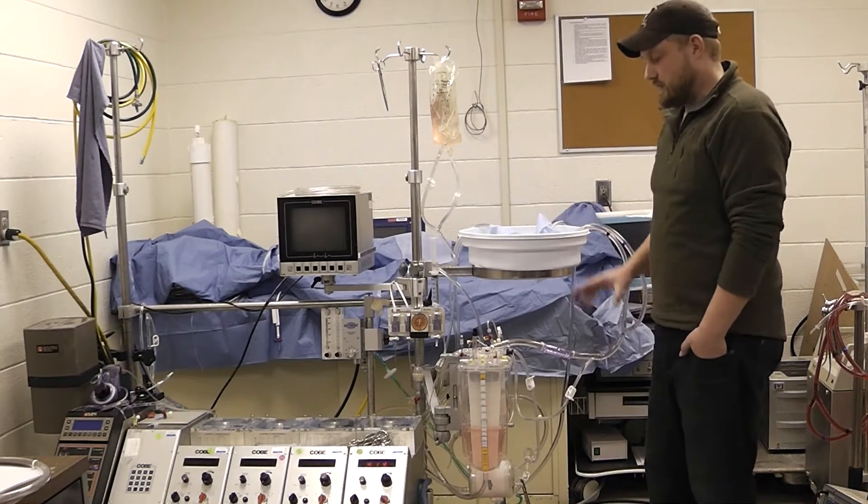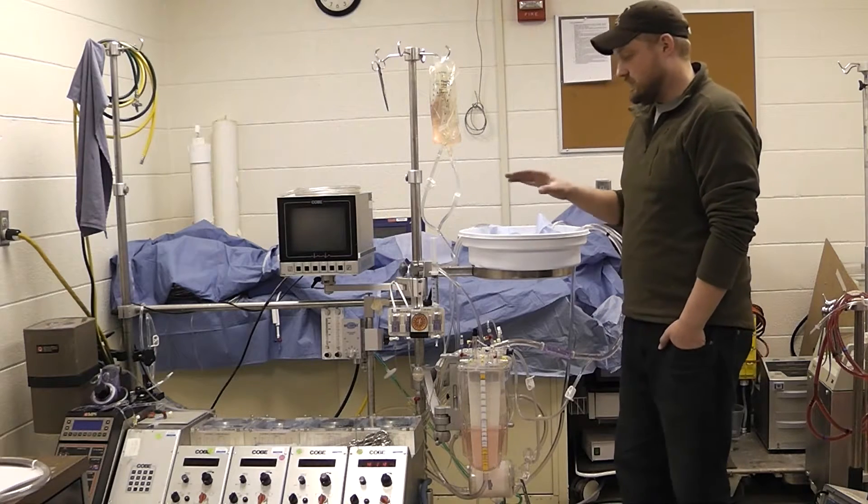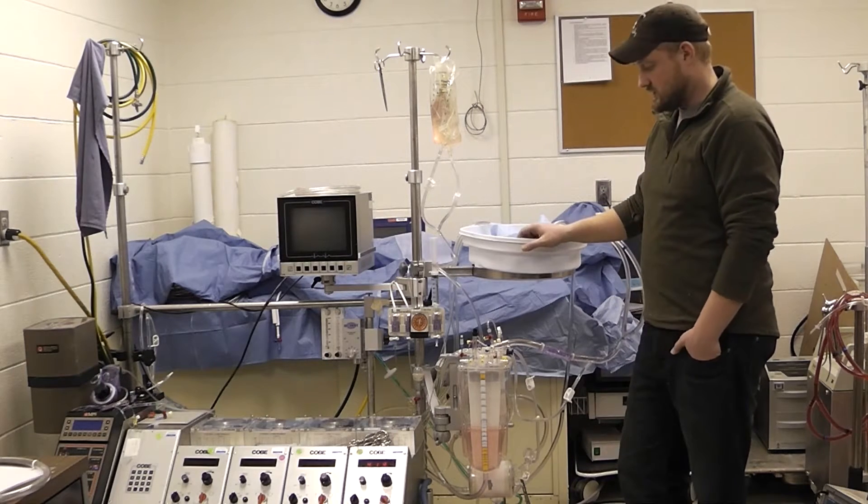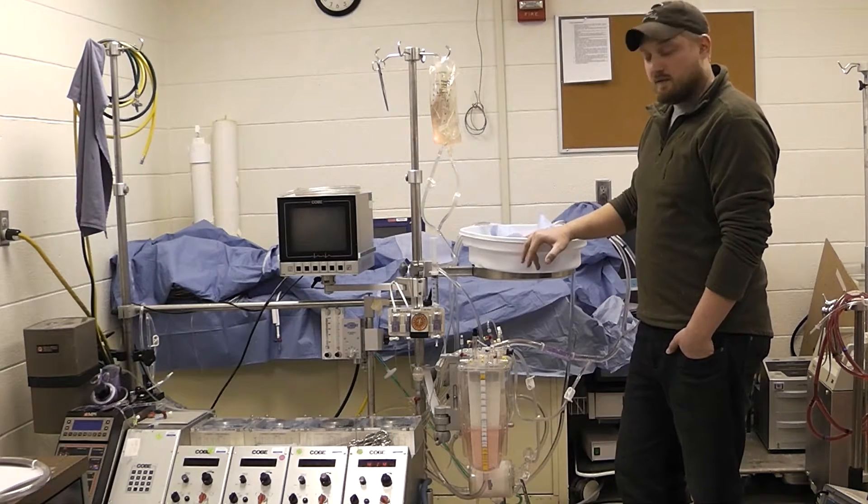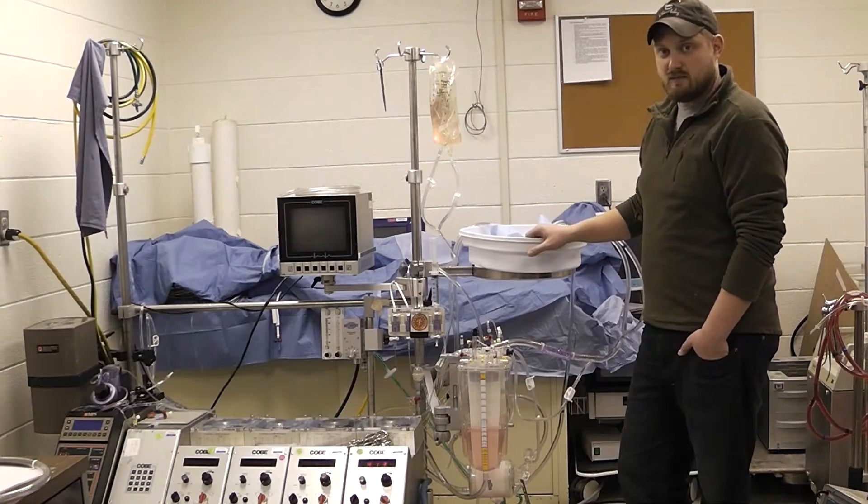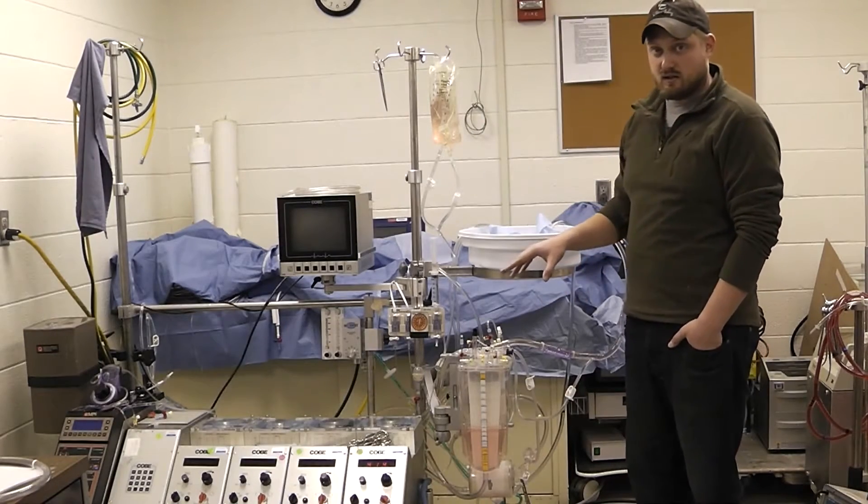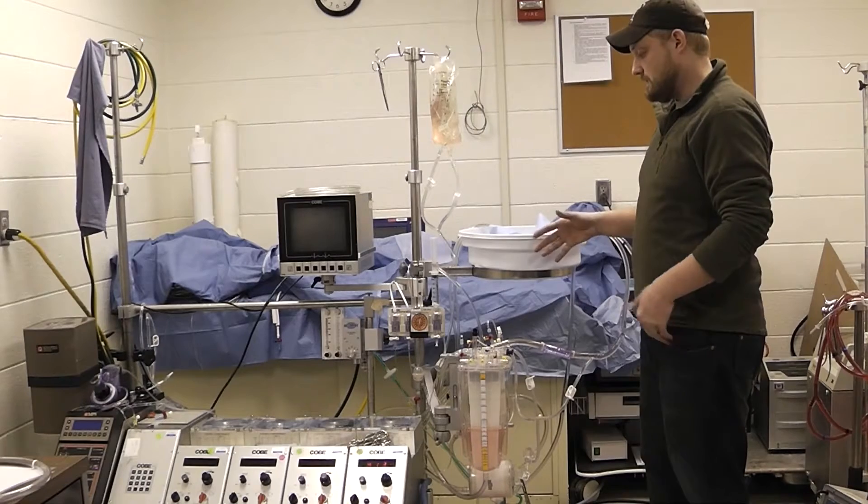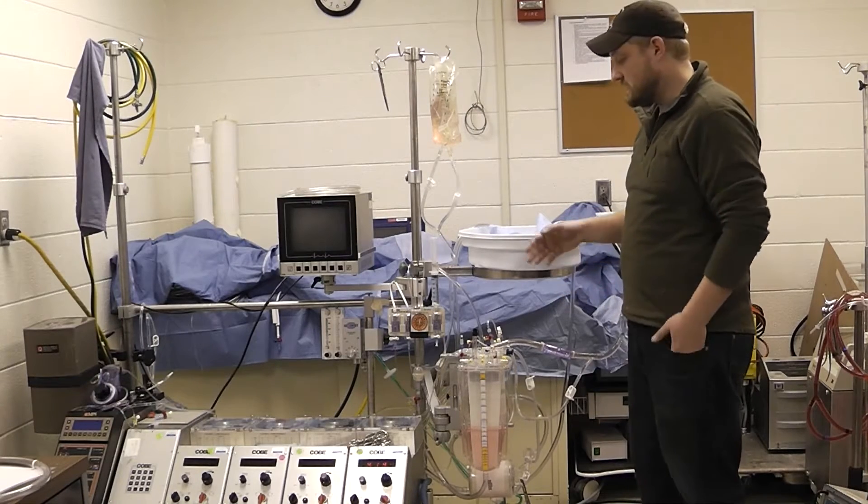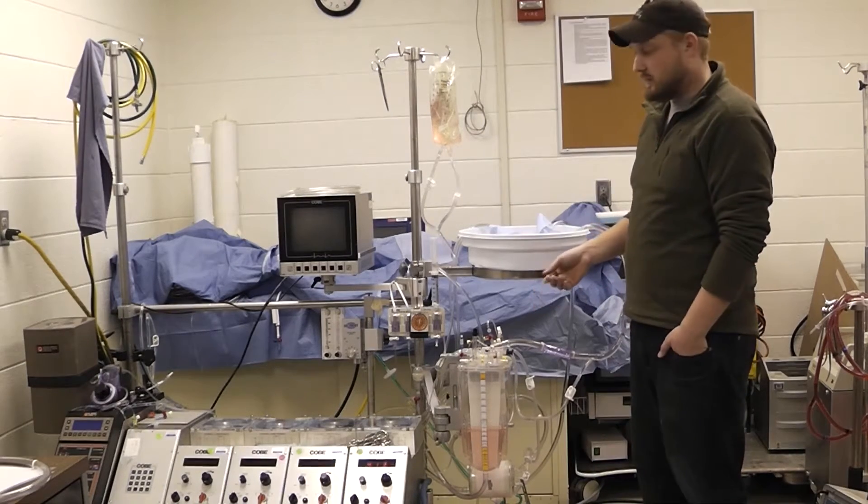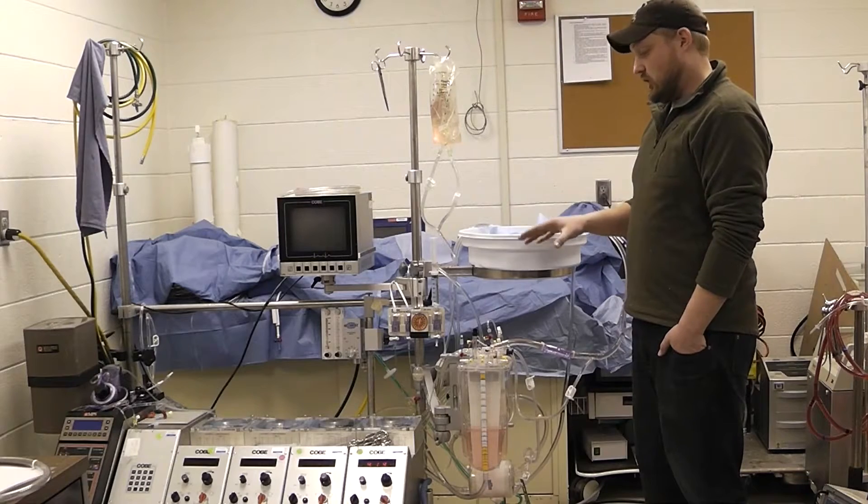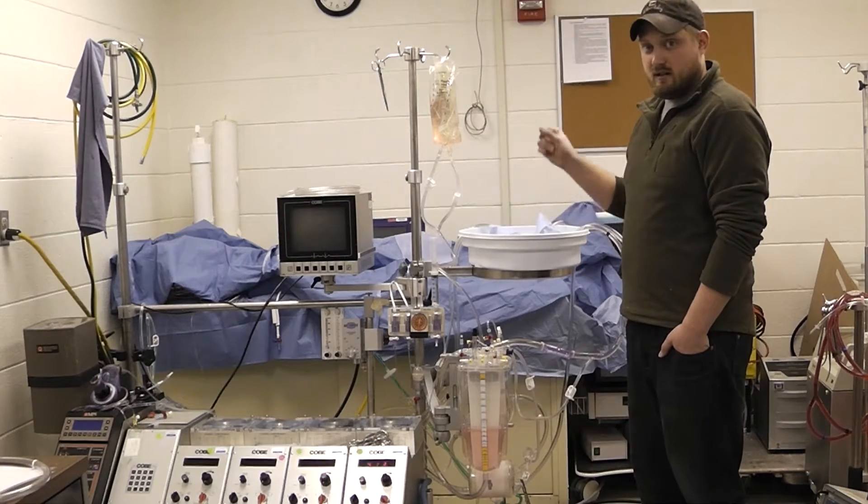Unlike an oxygenator failure change out, these situations are a little bit more stressful. When an oxygenator fails, we have a little bit of time to start disconnecting some ancillary lines and we're still flowing to the patient. We may still be oxygenating a little bit. It's urgent but not immediate.